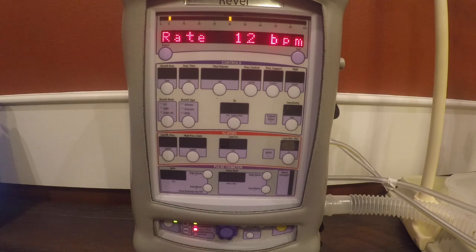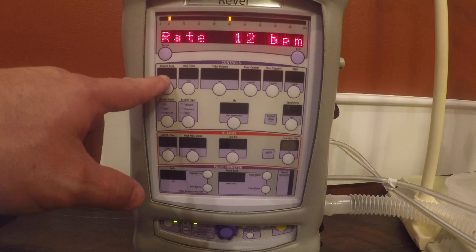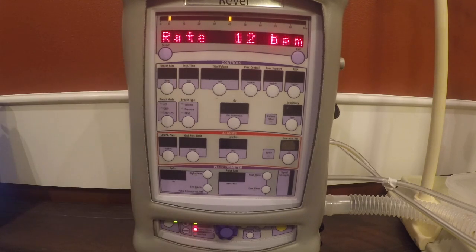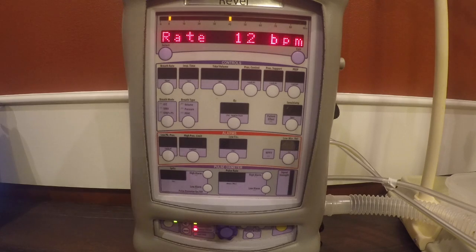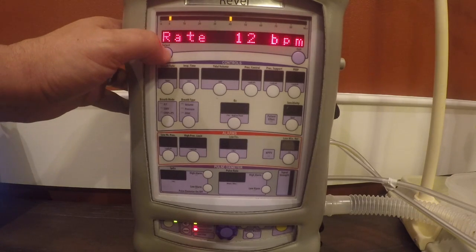The rate on the Revel ventilator when you're in the startup menu here is not the backup apnea rate. I think that's a misconception. Your actual backup rate will show up here under breath rate. This is a rate that actually augments the patient's spontaneous breaths. And so if you identify your patient, even though they're conscious, they're alert, they're fatigued, they may need a little bit of support, you can actually set a spontaneous augmentation rate of whatever you want.